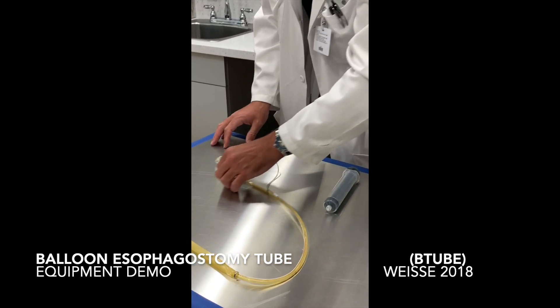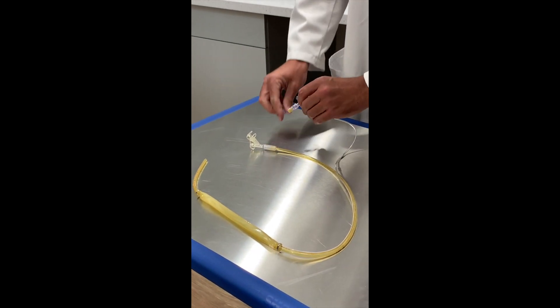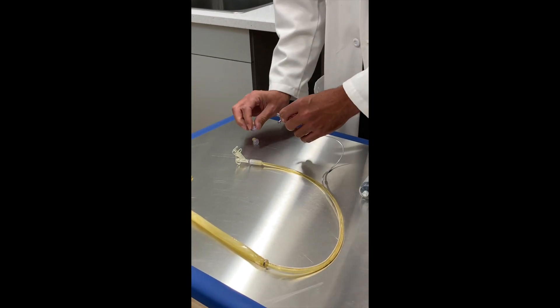We're getting ready to start. All we see is these two tubes. The first thing we do is take the injection caps off. We always take the injection caps off and put them someplace safe.